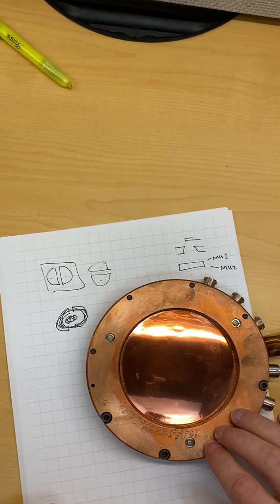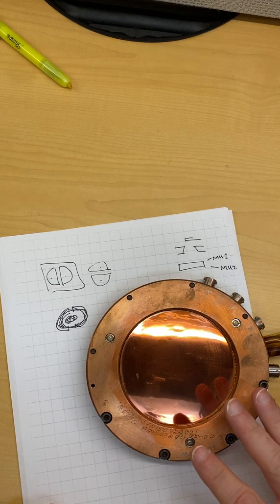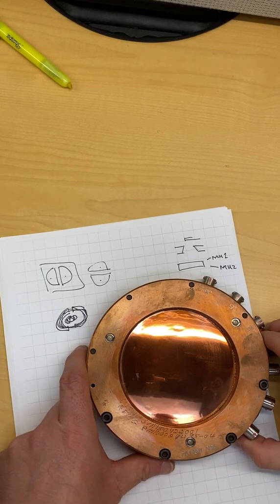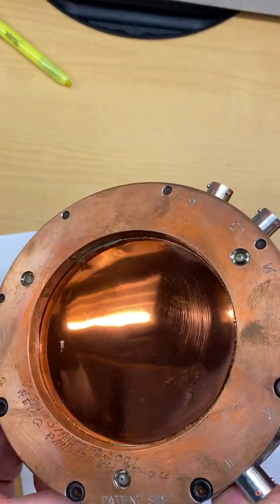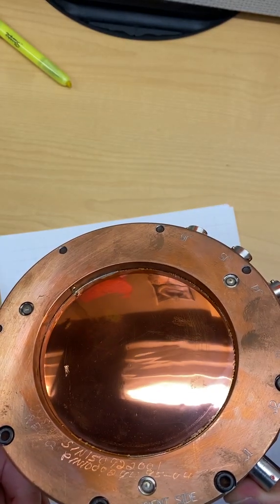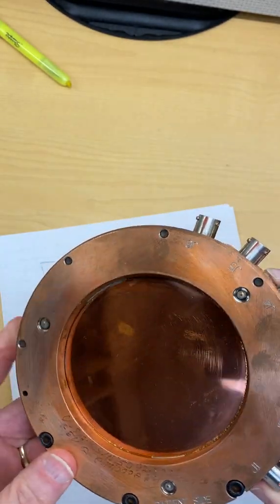The advantage being that they don't have to correct for that when the machine's running. The machine just runs. Then the question being, okay, so they sealed it, so why over-pressurize it, right? Why put more gas in there? And this thing is probably over-pressurized by maybe 10 or 20 percent.